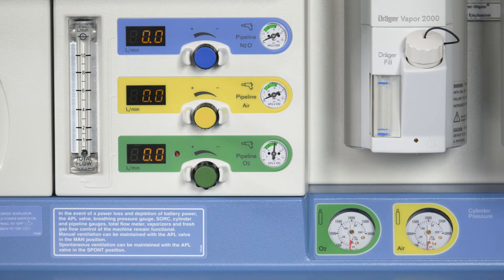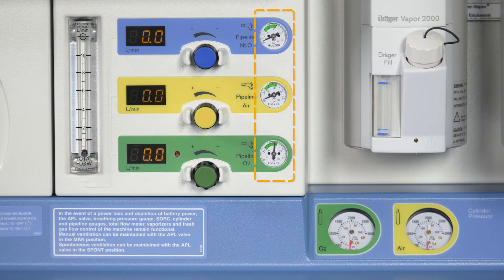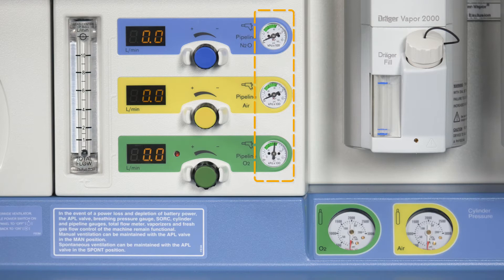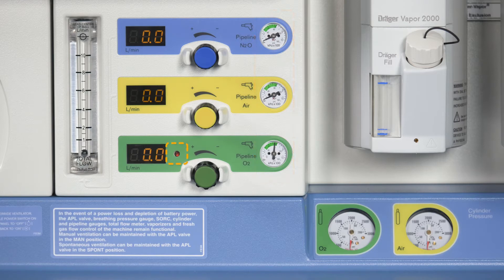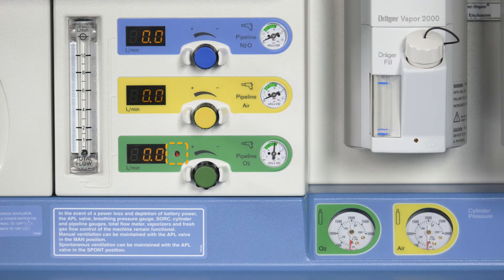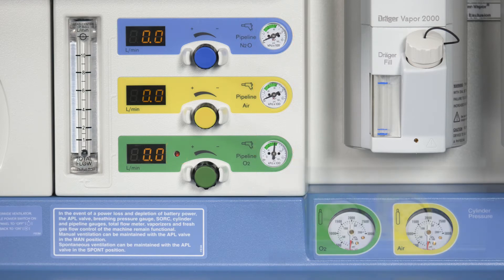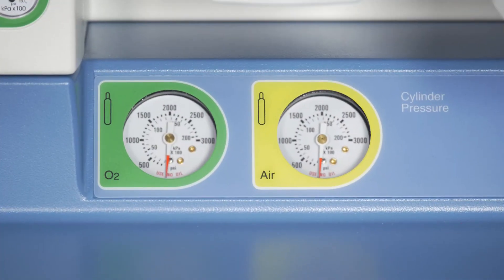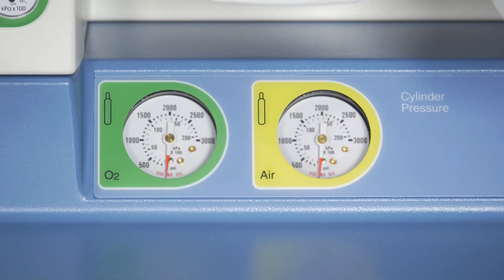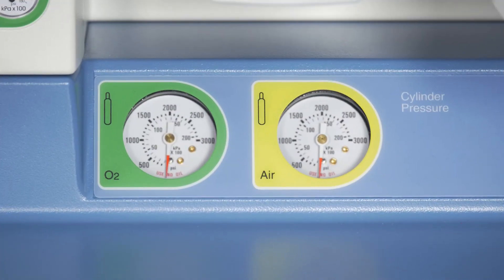In this area, you also find the pressure gauges for the central gas supply. An LED flashes when no central oxygen supply pressure is detected. There are also pressure gauges for the optional pin index oxygen and air cylinders.